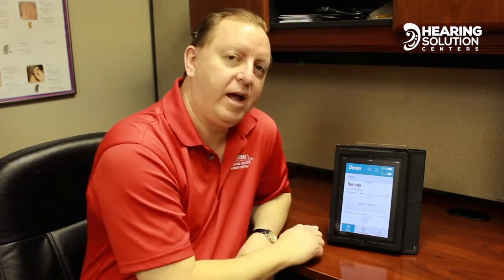People think, why would I want to have a remote? All these other hearing aids have remotes. But how many times would you walk away from the world without your cell phone? The answer is never. If you left the house without your cell phone, you're going to be frantically driving back to find it. That's the reality — that's why we came up with this.